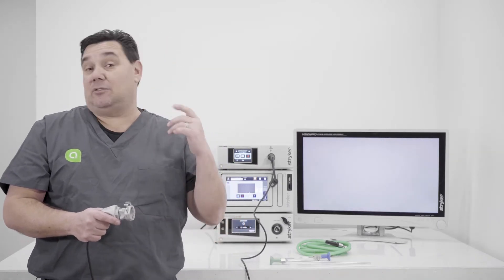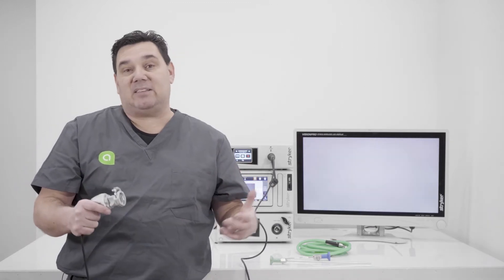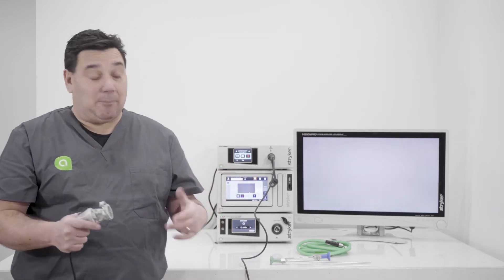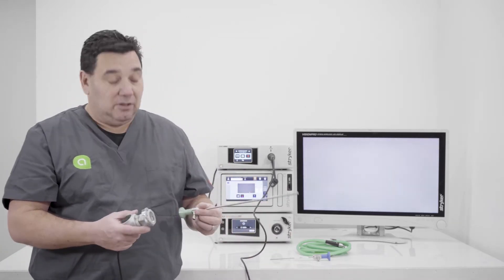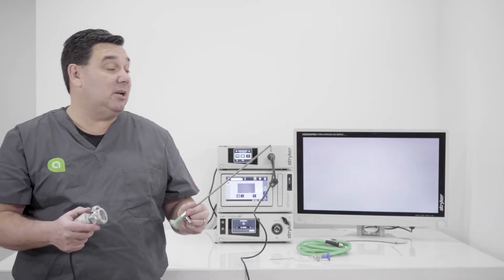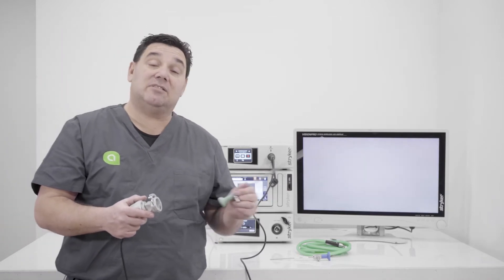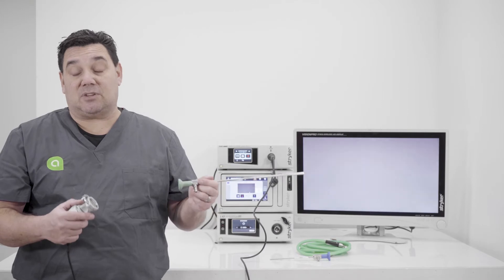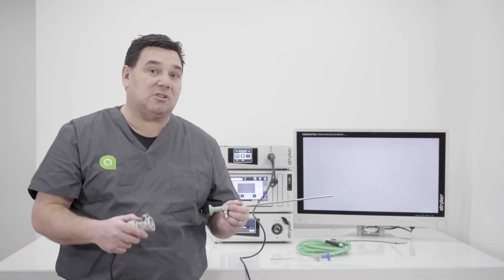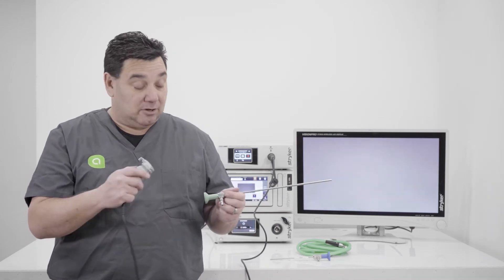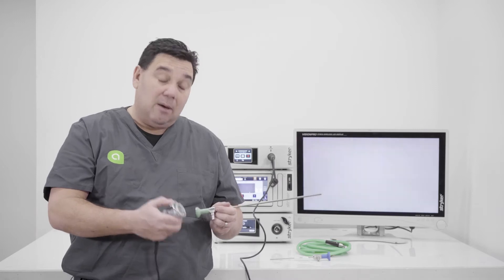Now, what type of procedure are we doing? Are we going to do a laparoscopy? Are we going to do an arthroscopy? Those are things that you would have to determine what you're going to do. And then the needs are going to be different based on what you have. So if you were doing a laparoscopy, you would need what's called the laparoscope. This one right here is a five millimeter and it's a zero degree laparoscope and it's also green. So this is their AIM laparoscope. It's to see the green light during the actual procedure. So hence the green eyepiece. So green for green.